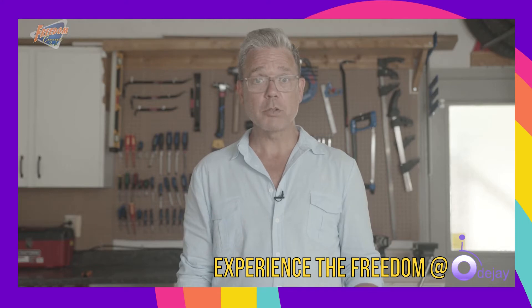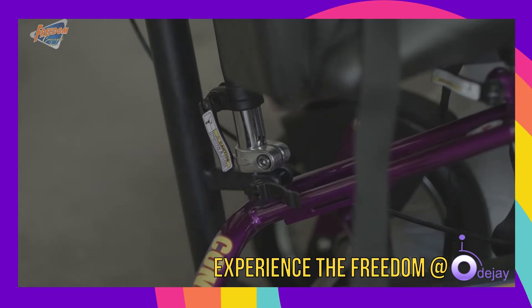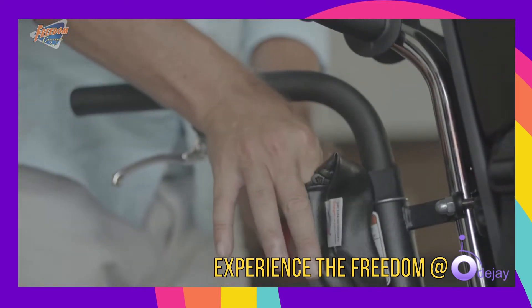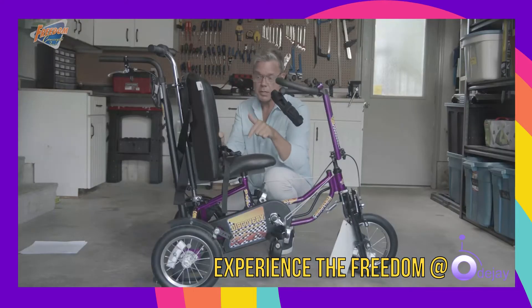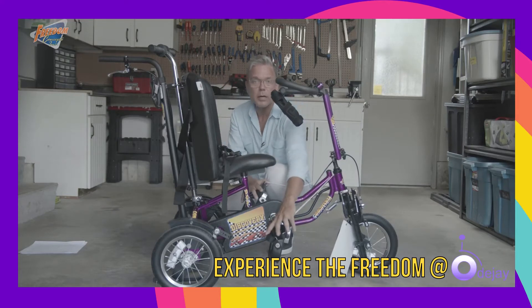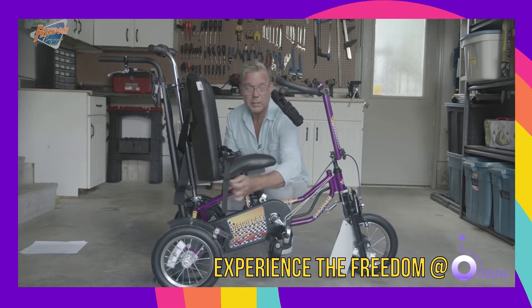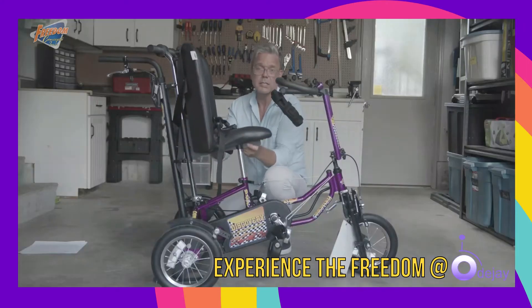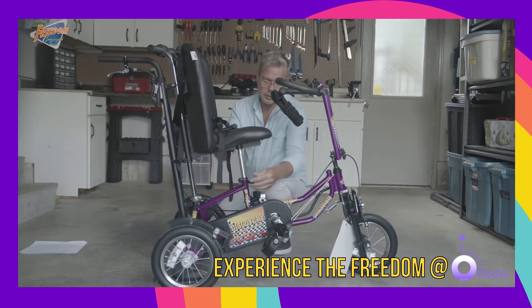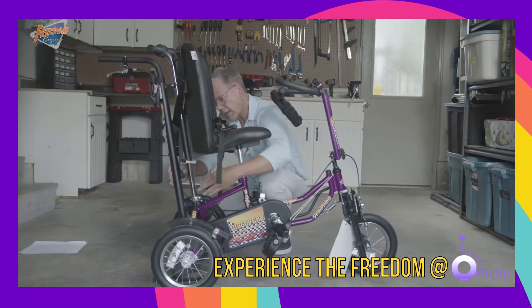Every Freedom Concepts bike has multiple quick release levers located on the bike, making it easy to adjust the bike for whoever is riding it. Each bike also comes with a multi-tool which has all of the attachments required for other adjustments. To adjust the seat height on the Discovery, you release the lever on the front seat post as well as on the T-bar, and then you can adjust the seat height according to the rider's needs. When you're done, lock it in place and you're good to go.